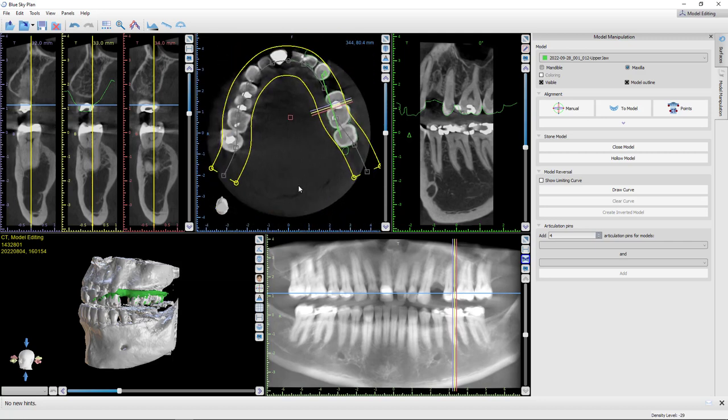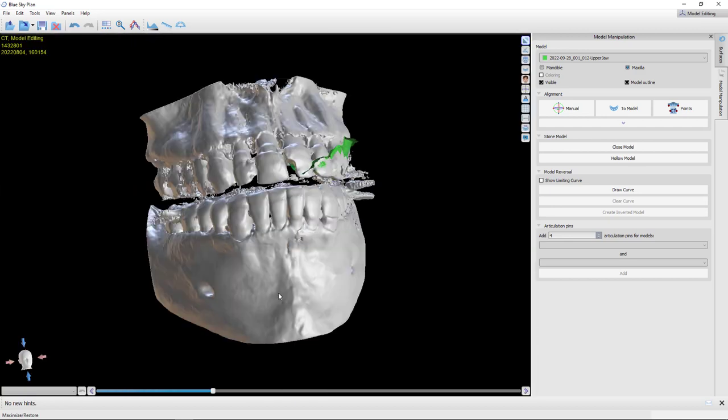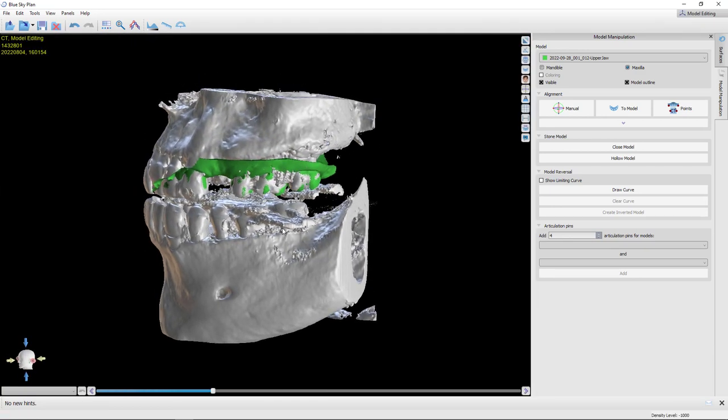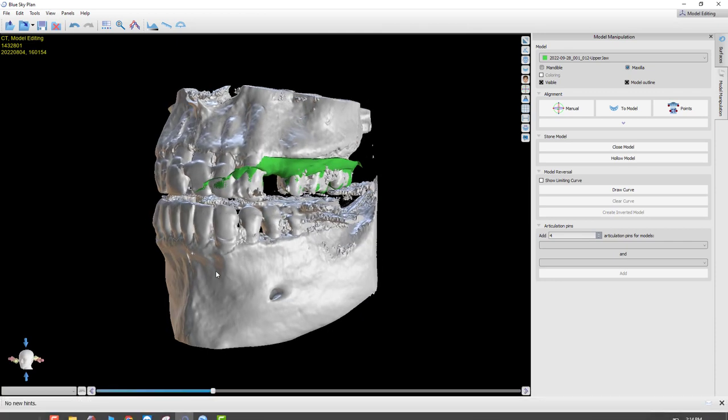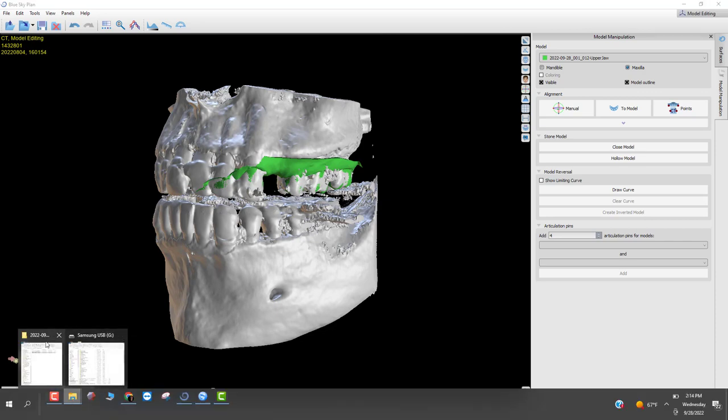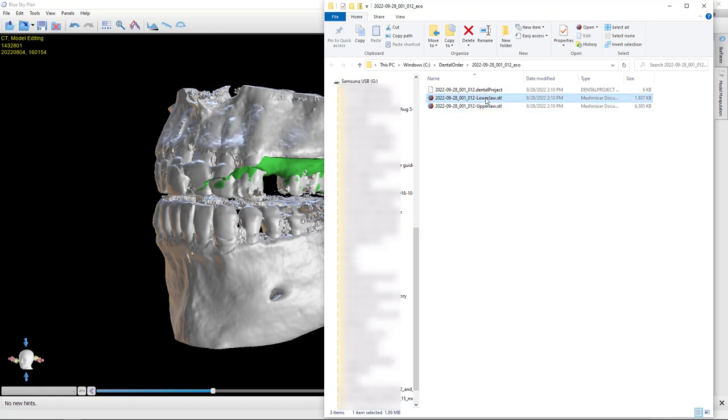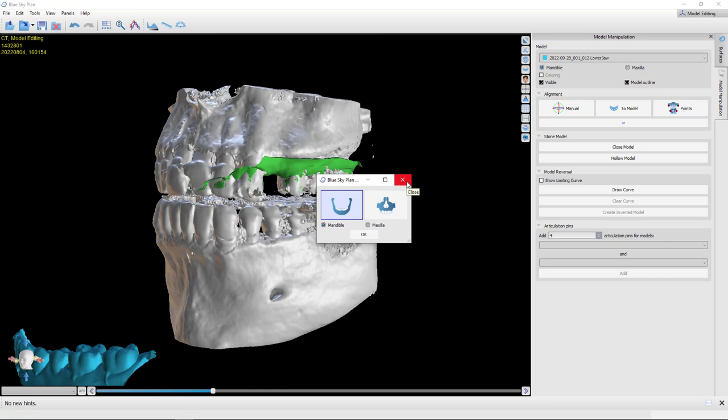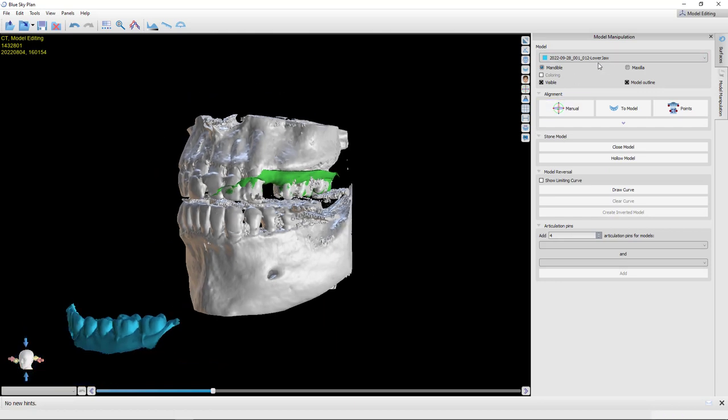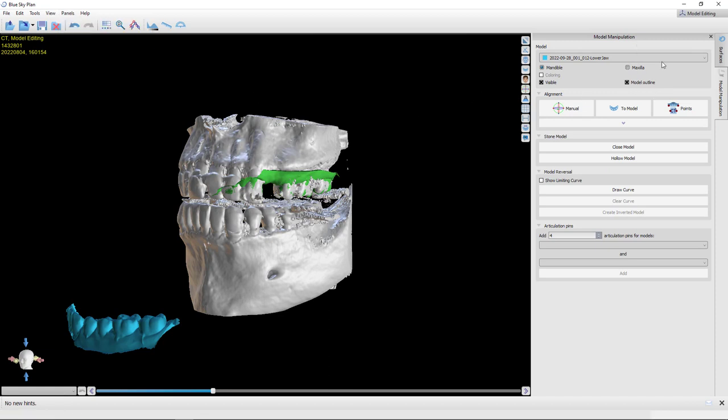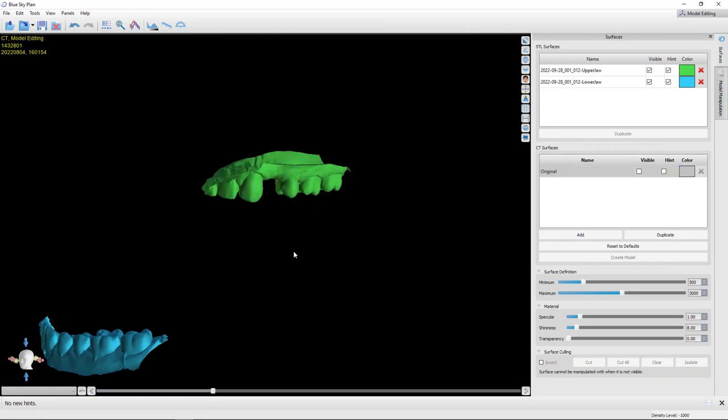With that done, I'm going to bring in the opposing. Now, one little trick here. Do you notice that the cone beam was taken with the bite open? So if I bring this in and stitch the mandible to this, well, now I have no way to judge occlusion when I'm doing this. So let me show you how I'd bring that one in instead. Now I'm going to grab the lower jaw. Okay. And just like before, it's going to ask me to do this and it's wanting to stitch it to the cone beam data. That's not what I want to do. I actually want to bring it back into its original orientation to the maxilla. So when this pops up, this is one of those unique circumstances, just disregard it, click the X, make that go away. And rather, come up here to panels, model manipulation, which is the one open right here.